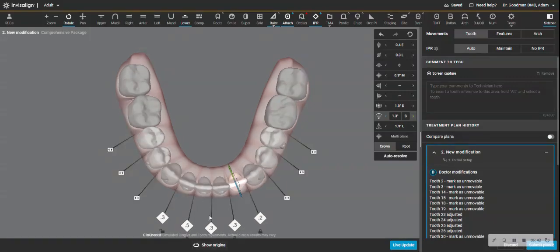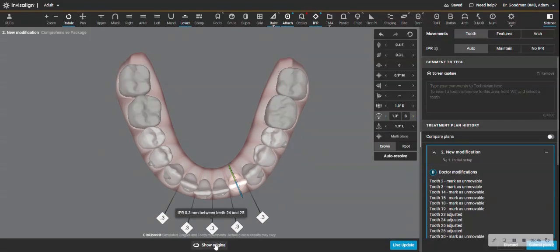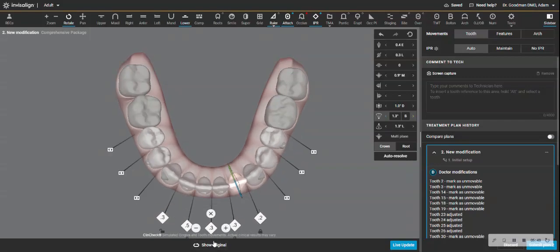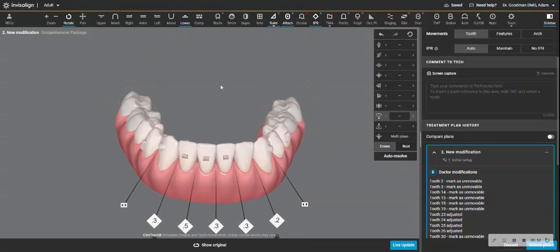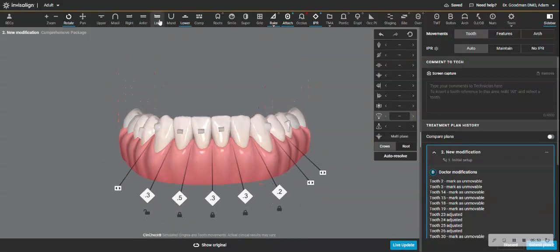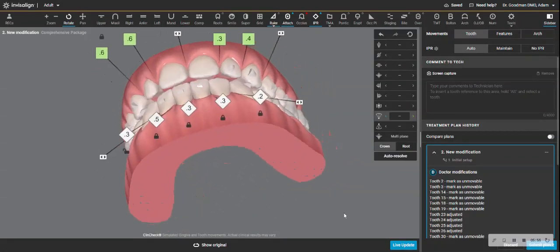Now, hard to see, but there's a little bit more of a tipping as the teeth come in. I'm going to even remove more of it. You see how the crown edge, the incisal edge, is more the leading movement now. It's moving more. Same with the central. All right. So now let's see where we are.